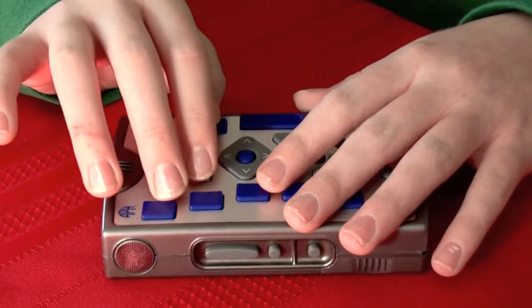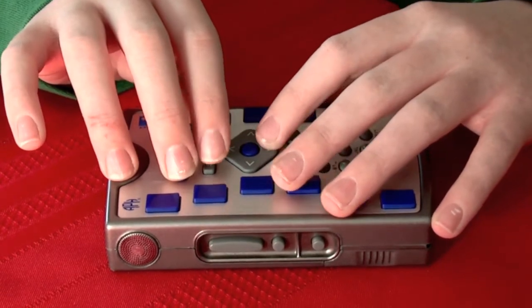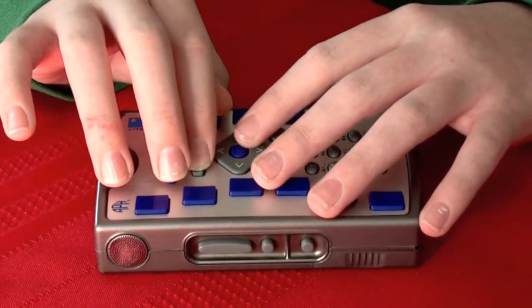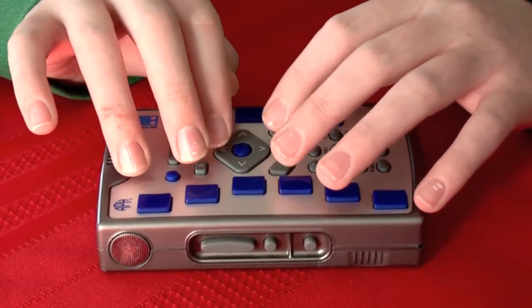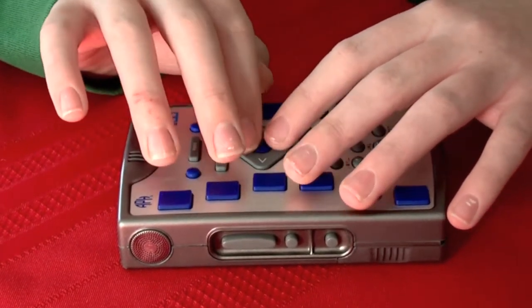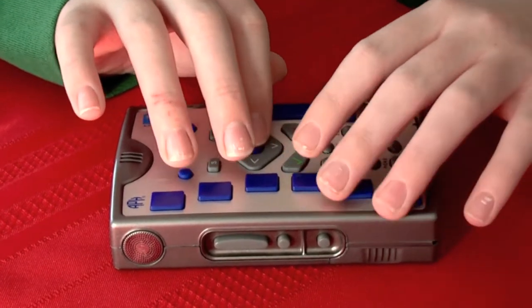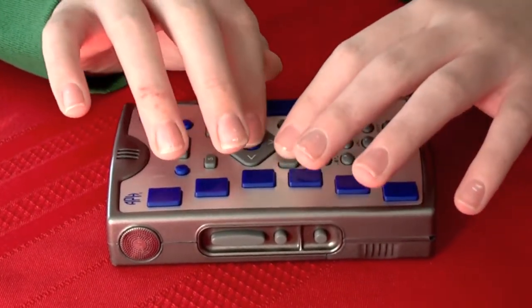If you are just starting up your Braille Plus for the first time, or have recently done a full reboot, your time and date will not be set correctly. If I hold status to get to the status menu, it goes back to 1999 on December 31st. I need to set my time correctly, but being that I'm connected to Wi-Fi, I can update my time using the internet.